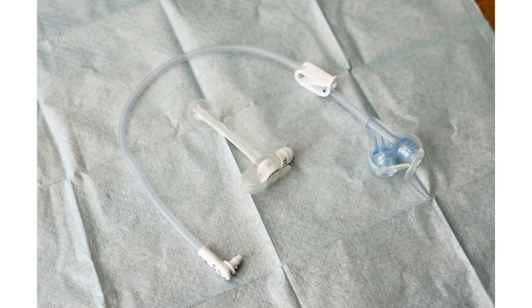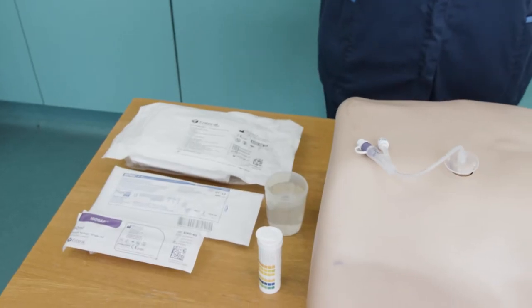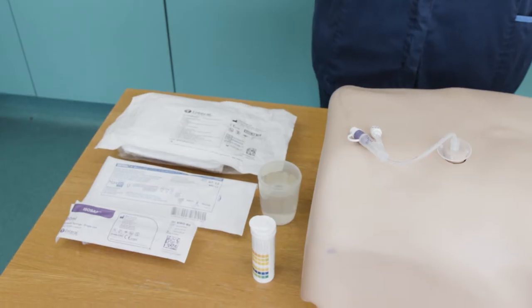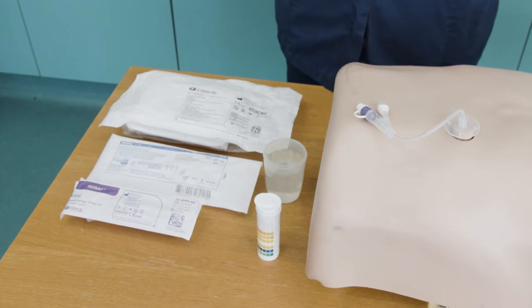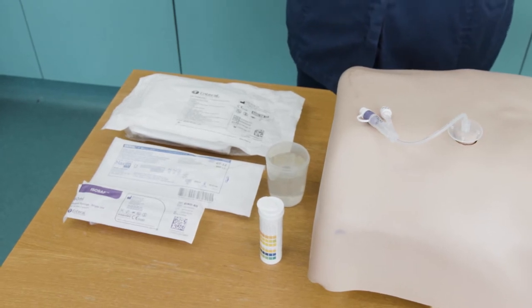Please note that if you work in a ward environment and no gastrostomy pack is available, you will need the following equipment. However, patients in their own home or a care home will receive a gastrostomy pack on their nutrition delivery.